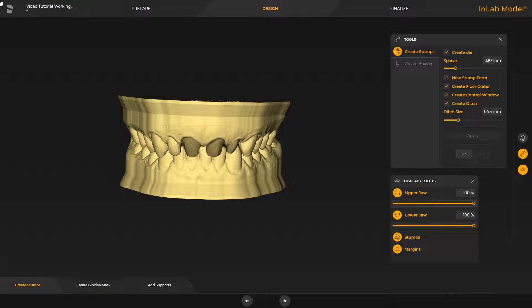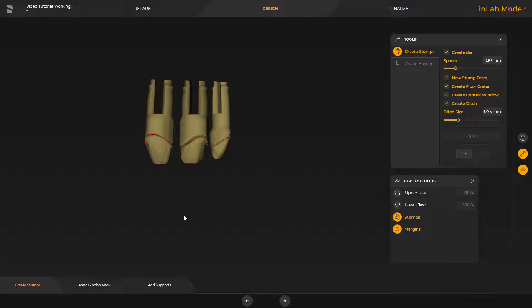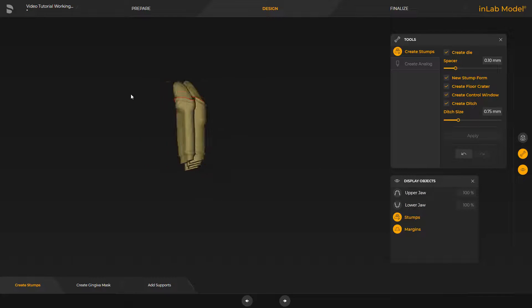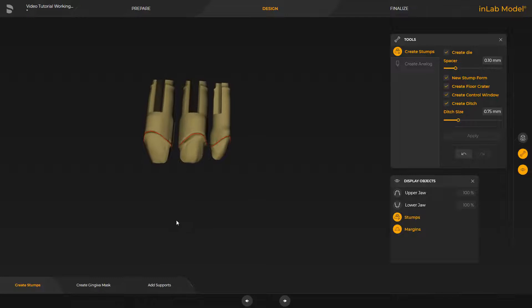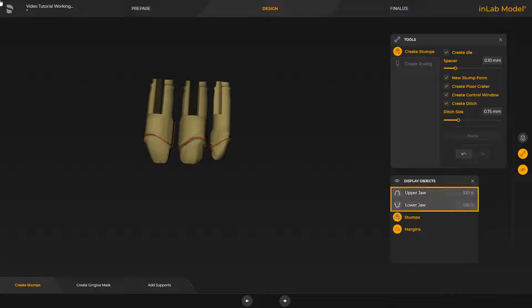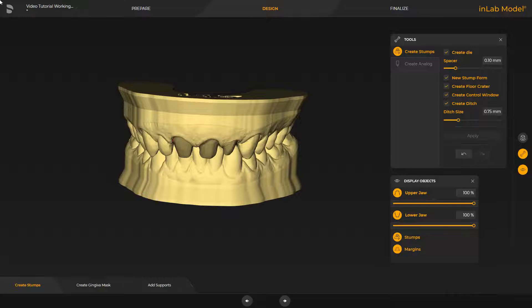To visualize the stumps, we disable both the lower jaw and the upper jaw. Here you see the new stump shape, which can be placed especially smooth and wobble-free, thanks to its special root shape and the snap-in effect connected with it. We enable both the upper and lower jaw once again and proceed with the Create Gingiva Mask step.